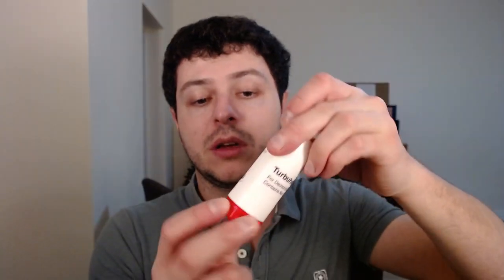So that's basically it. The dose counter would go down, but because these come in twenties, it will slowly start to go down — you have to take quite a few doses. The dose counter is a lot smaller than on other devices, but it works very well. It's very easy to use once you get the hang of it. And once you're done, you just twist it back in. So that's the Turbuhaler.